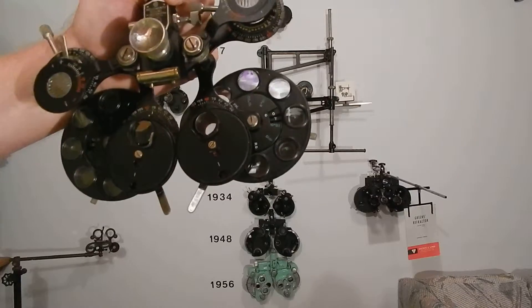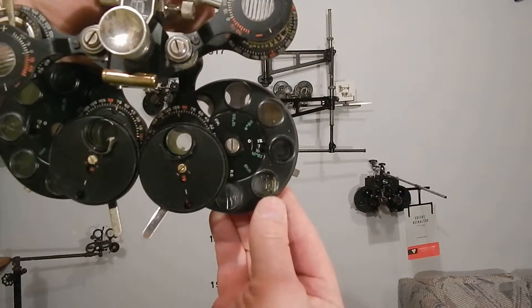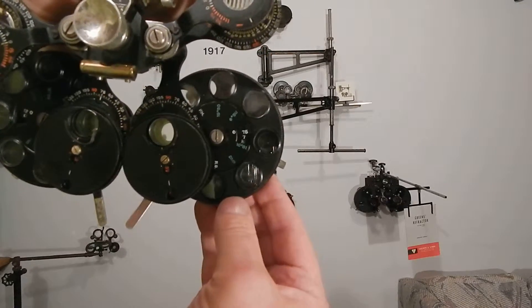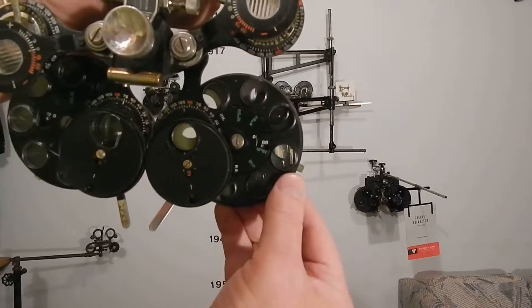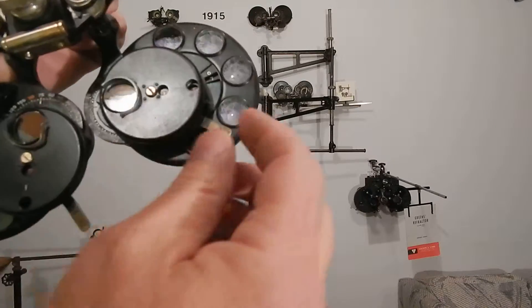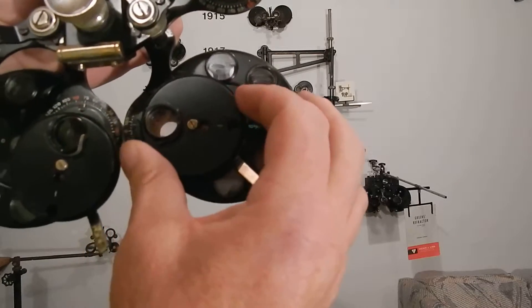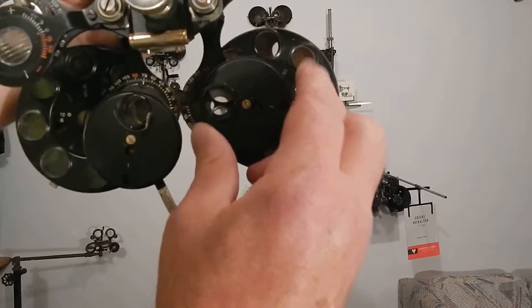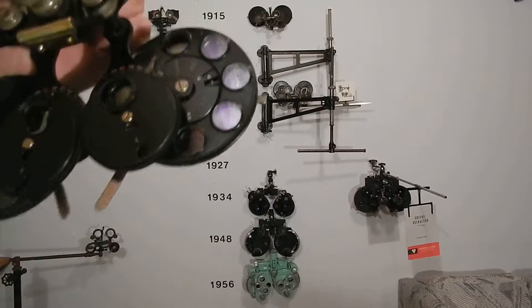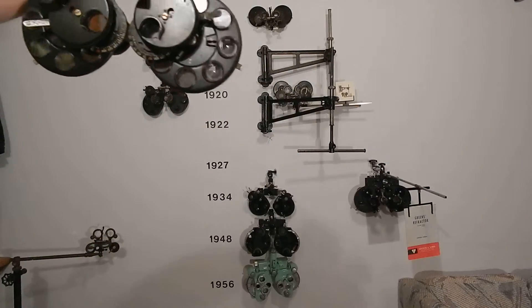The really problematic thing about this one is that everything is in eighth-diopter steps, which is just horrible. It goes plano, 0.12, 0.25, 0.37, 0.50 and then back to plano — or 0.62, 0.75, 0.88. In the front it goes all the way to one diopter. For example, to get a one-diopter cylinder you need 0.37 in the front and 0.63 in the back. I think American Optical was trying to sell more lenses to opticians — if they could convert everybody to eighth-diopter steps, they'd sell more lenses.